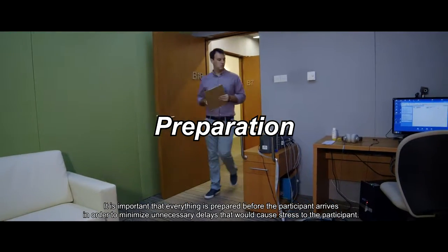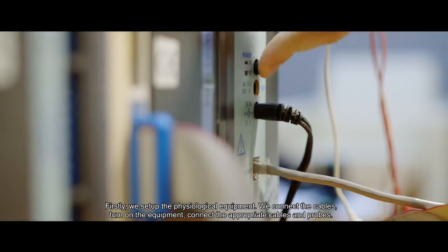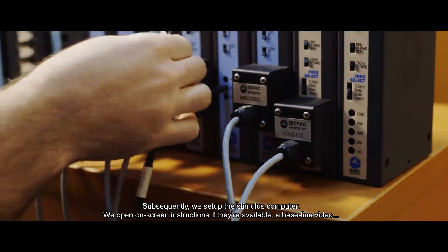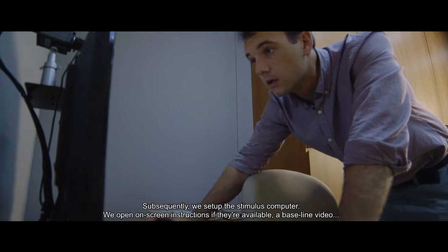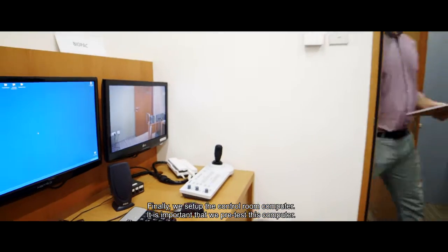It is important that everything is prepared before the participant arrives in order to minimize unnecessary delays that would cause stress to the participant. Firstly, we set up the physiological equipment. We connect the cables, turn on the equipment, connect the appropriate cables and probes. Subsequently, we set up the stimulus computer. We open on-screen instructions if they're available, a baseline video, and MATLAB or other stimulus presentation software. Finally, we set up the control room computer.